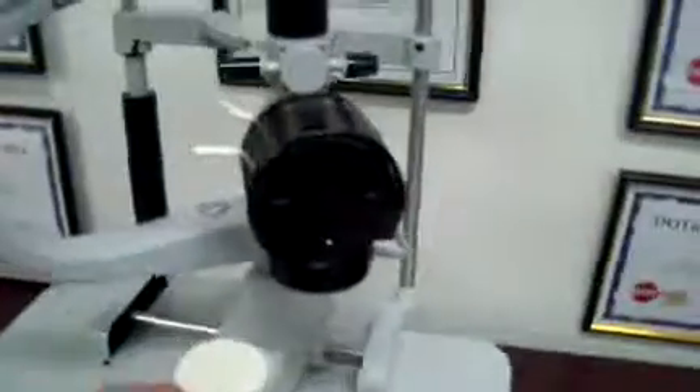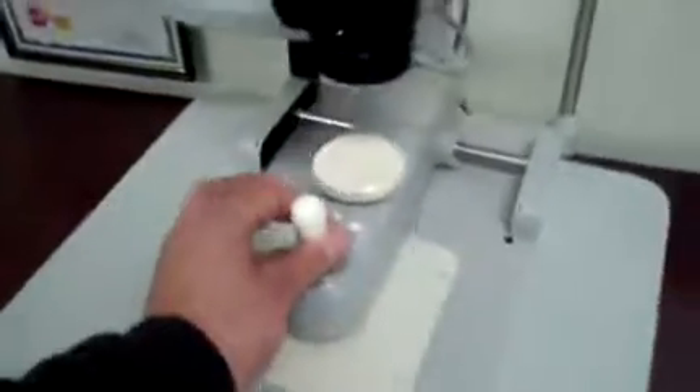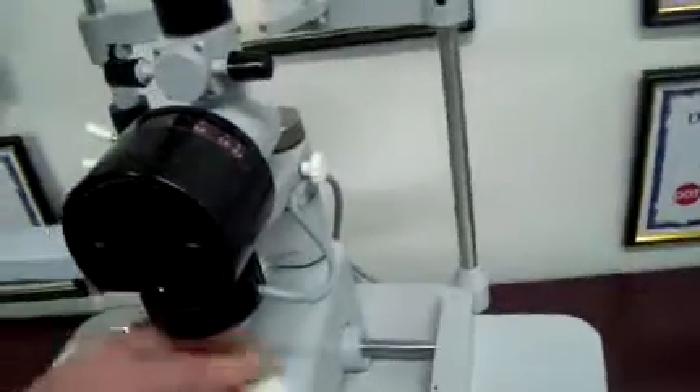Go ahead and power it — we'll show you here. All the adjustments work real nice. Up and down is very smooth. So all X, Y, and Z axis are in really nice shape. We'll go ahead and power it on. I have a blue filter on it right now.